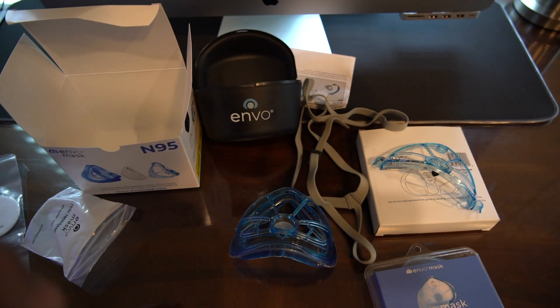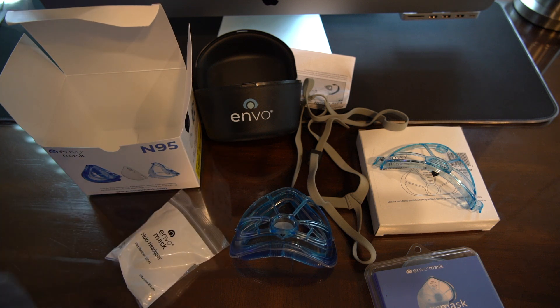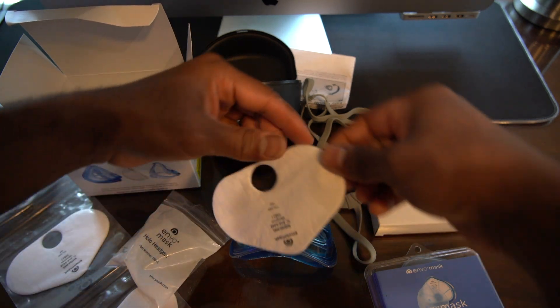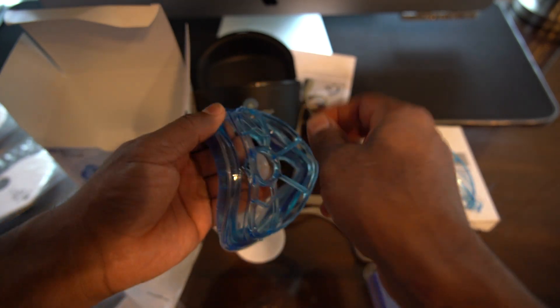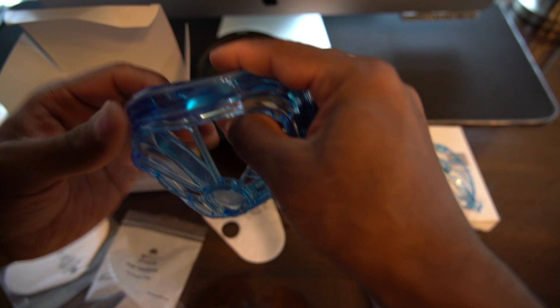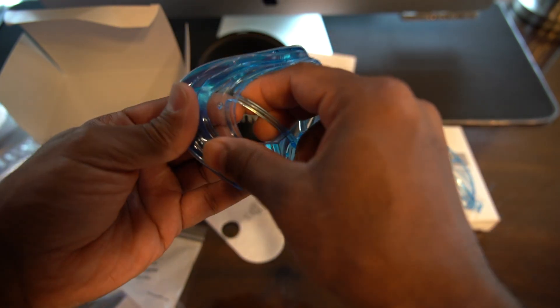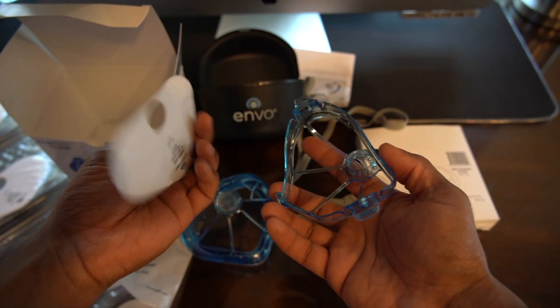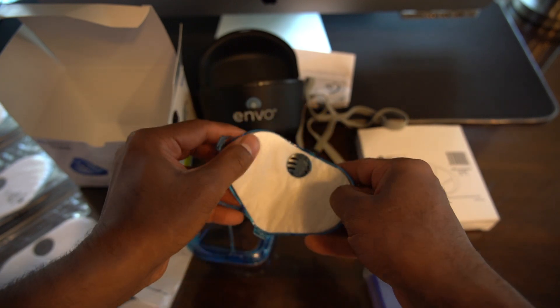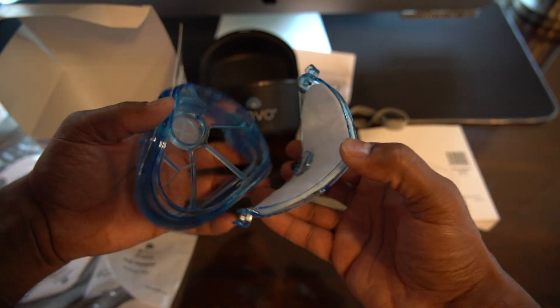Main reason for buying it is comfort and protection. Let me try to put it together — our hospital had a new policy about this. I probably should read the instructions first. Alright, pretty simple setup: take the filter, put it in the cover. I'm doing this for the first time, just give me a break.